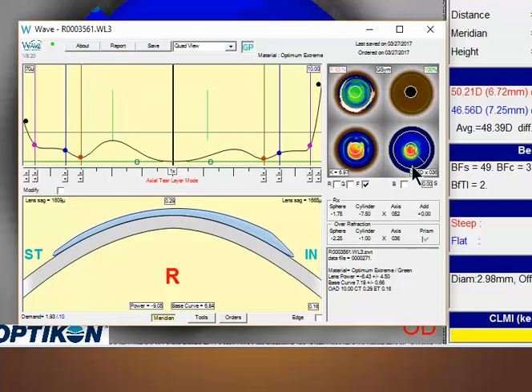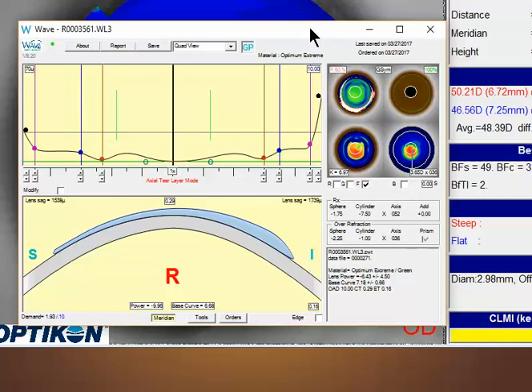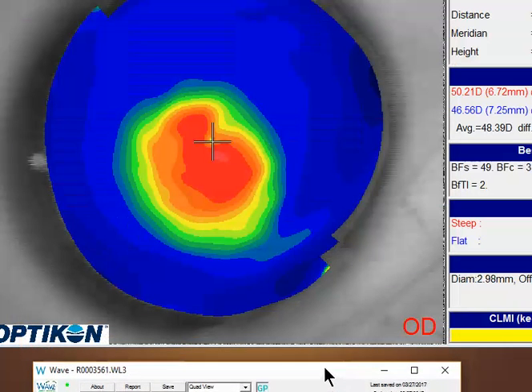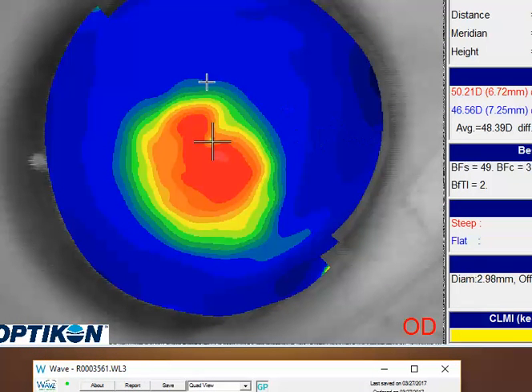The key to trying to get this lens to center and align the best that you can is to try to get that lens to line up and match this peripheral part of the cornea as well as you can. Now keep in mind we're a little bit limited because much of this data is extrapolated when Wave creates this lens. However, there's a couple things you can try.